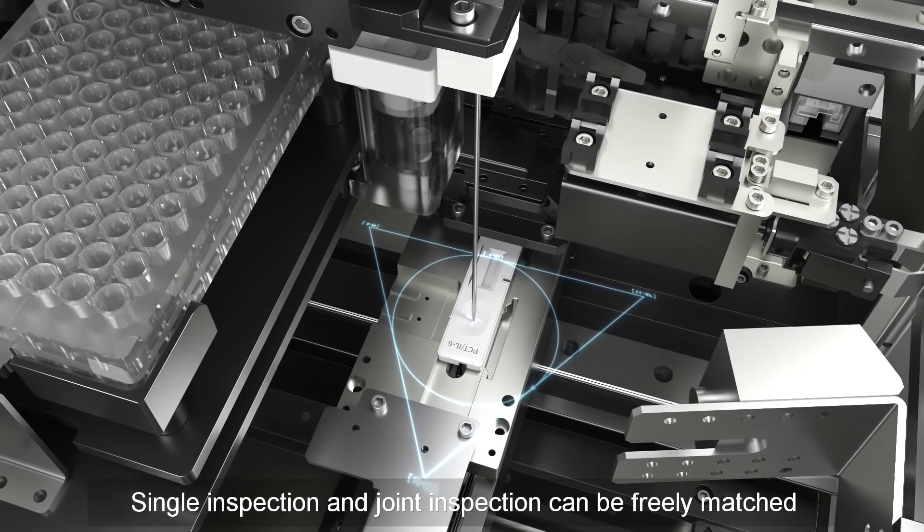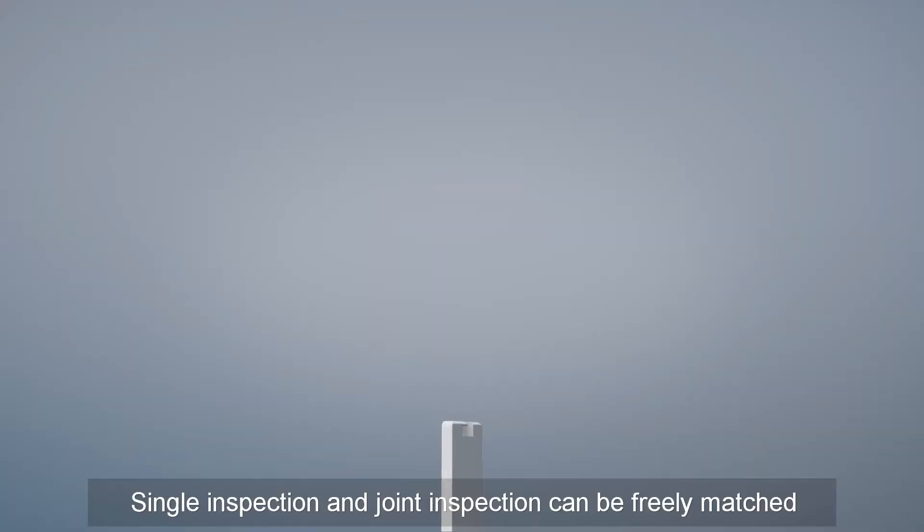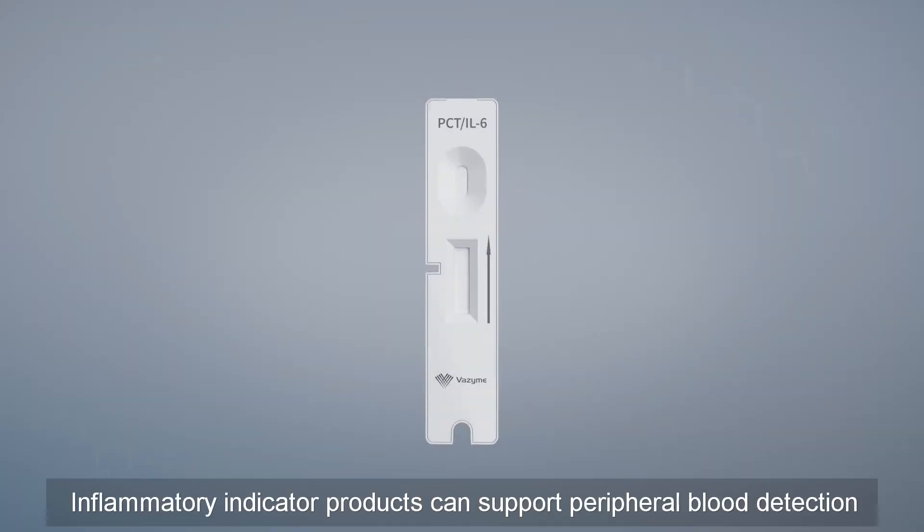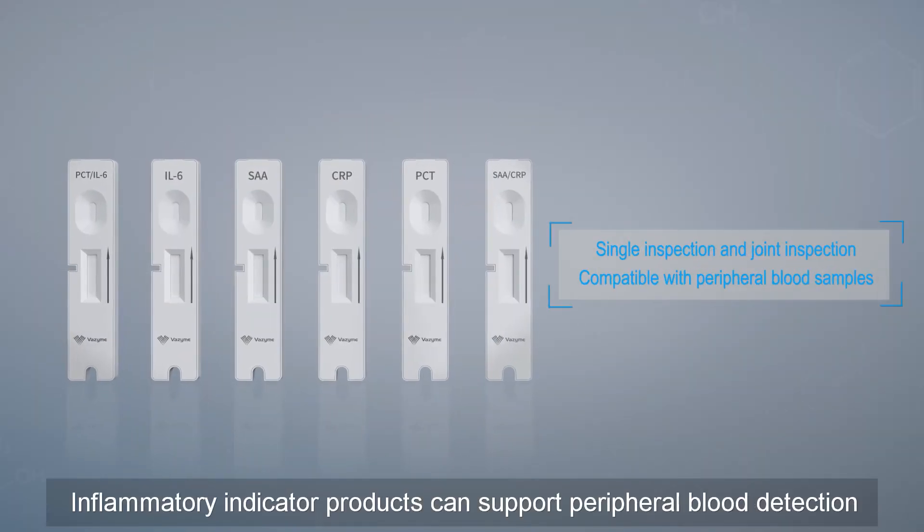Single inspection and joint inspection can be freely matched. Inflammatory indicator products can support peripheral blood detection.